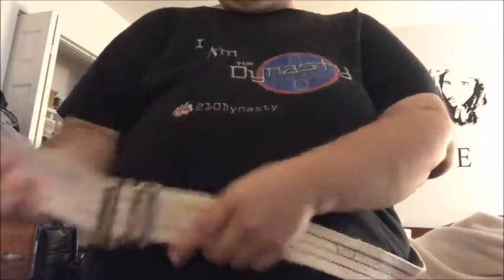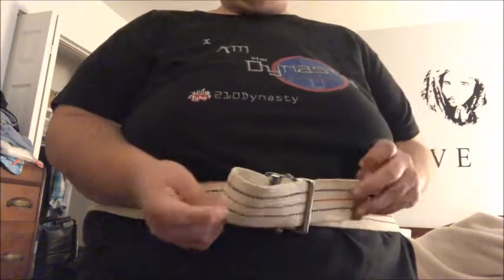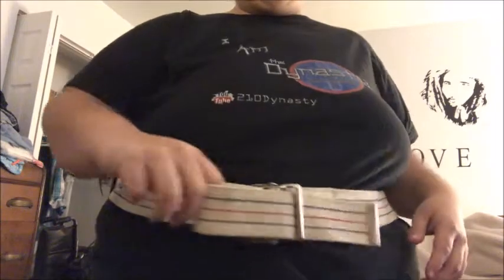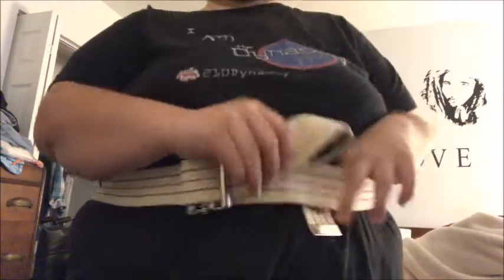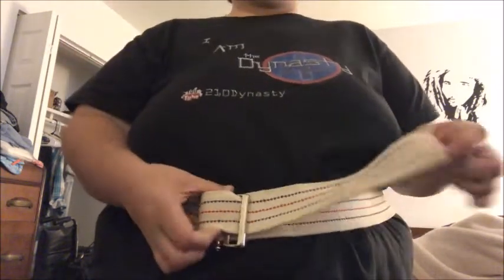Okay, let me move this buckle to the front. You see this little loop here? Now, obviously on a person it's a lot easier to show you — you literally just pull it. Voila, it's done. Tuck it in if you like; some people do, some people don't. Then you can do your transfer or whatever you're trying to do.